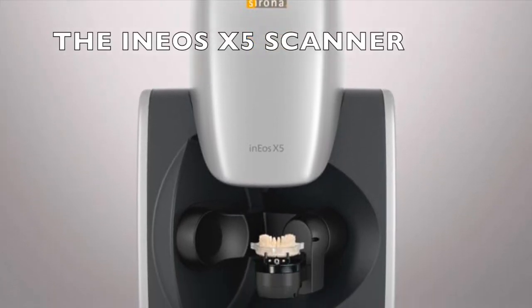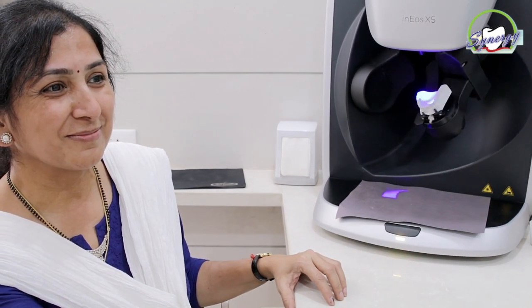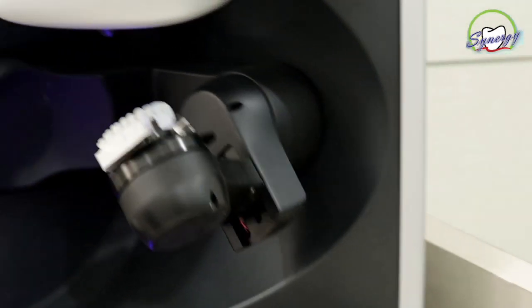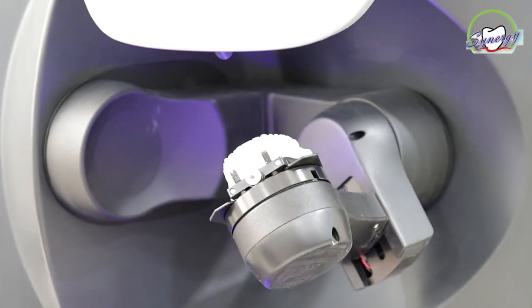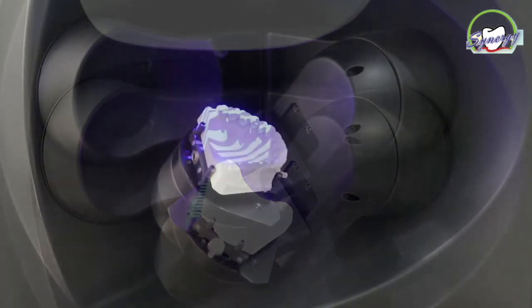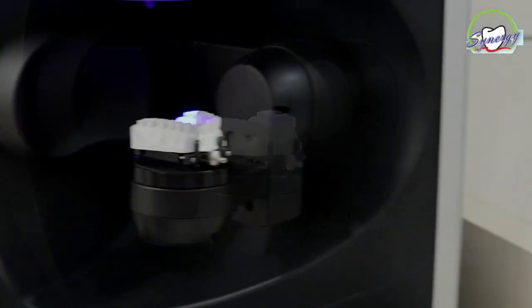Our digital workflow starts with scanning using the Ineos X5 scanner, which is one of the highest quality scanners and ensures great accuracy. The robo-arm automatically scans the models and provides outstanding accuracy and depth of field, allowing each individual angle to be scanned and picking up every detail very precisely.